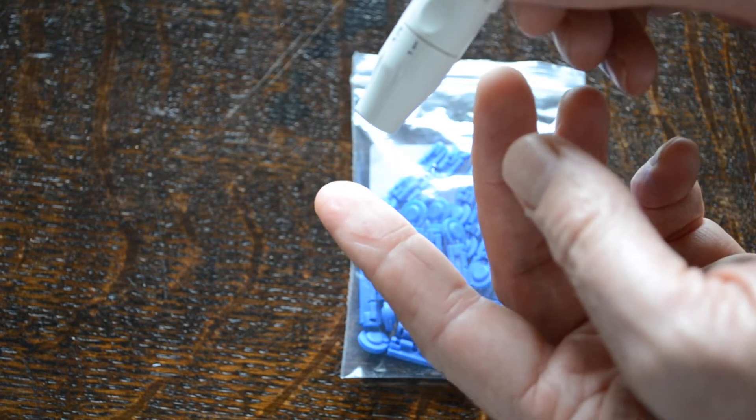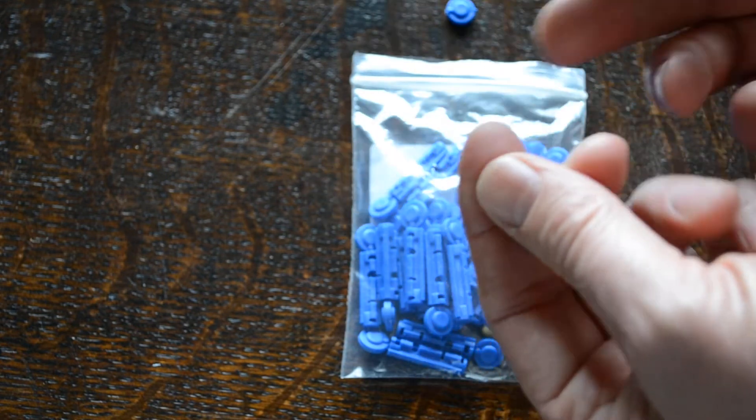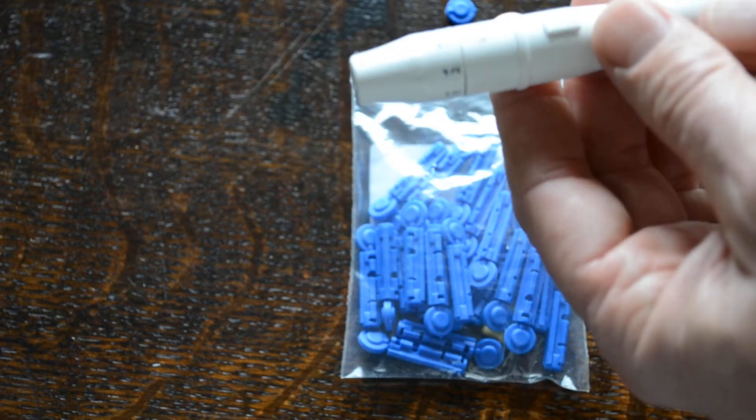Set now — you can hear that just triggering, and if that was on my finger it would have auto-lanced. I would then be able to apply the blood sample onto a test strip.